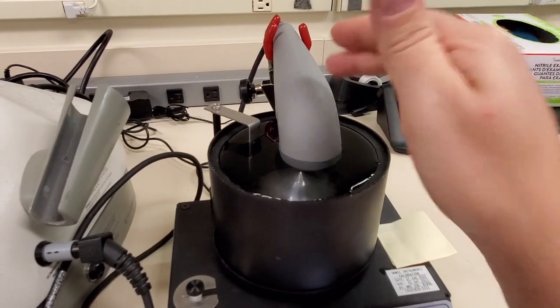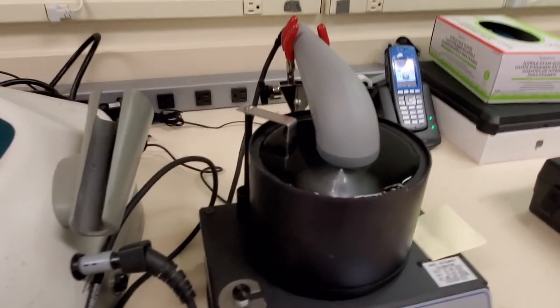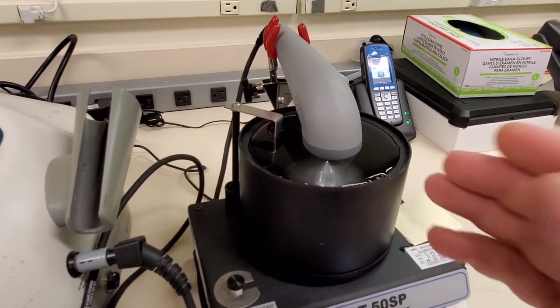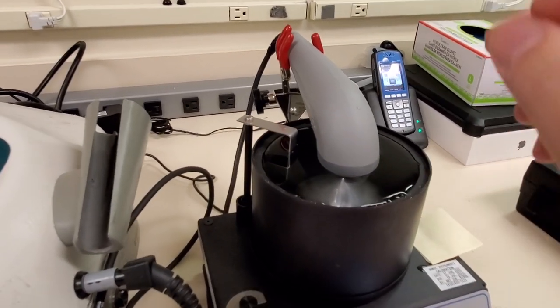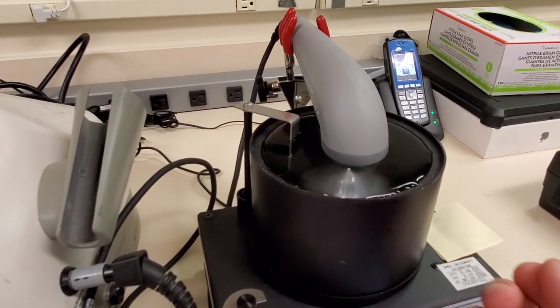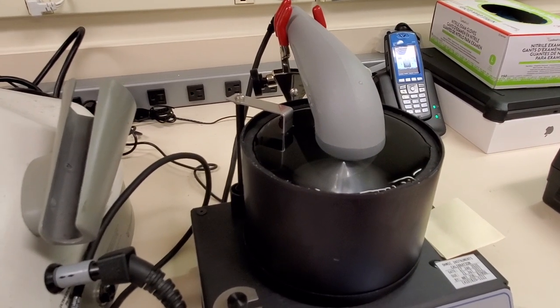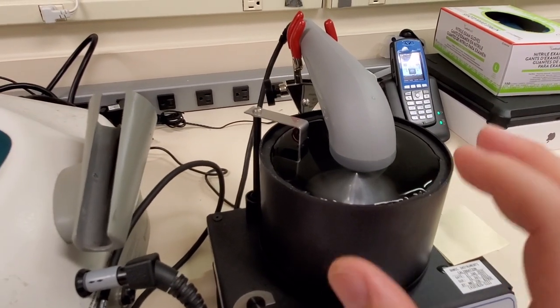Now I've never really had a huge problem with this before. I just use tap water, let it sit for a little bit, and then tap on the side a little bit and the bubbles will come out. But I haven't ever really had a huge problem with the gas of the water.